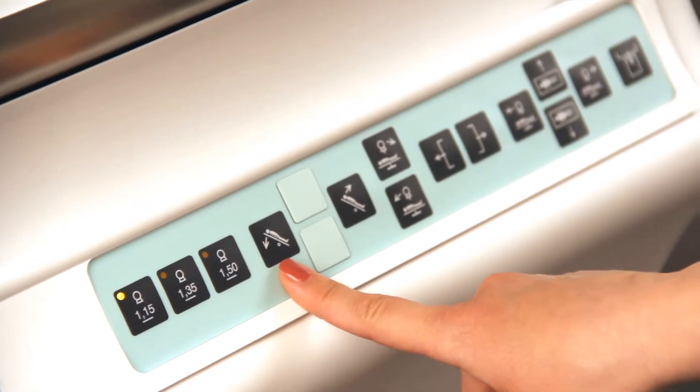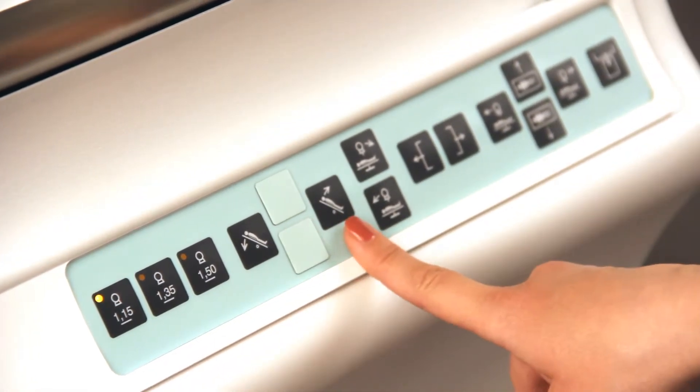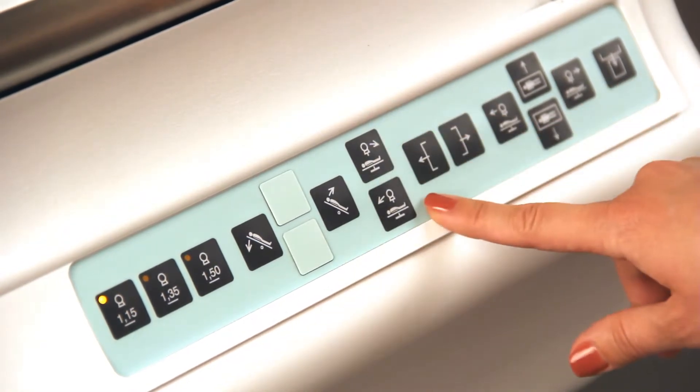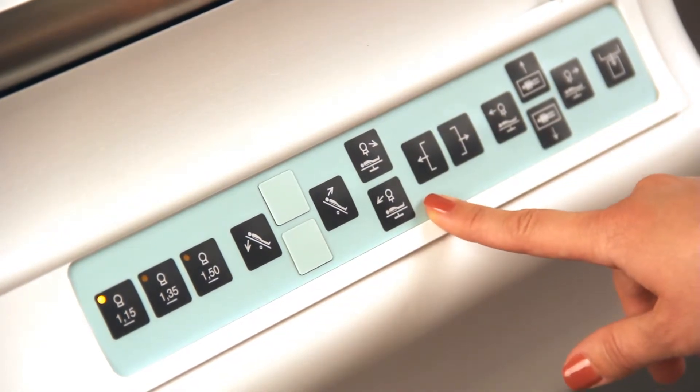Controls include tabletop tilting direction, the radiator tilt angle, and longitudinal tabletop movement.